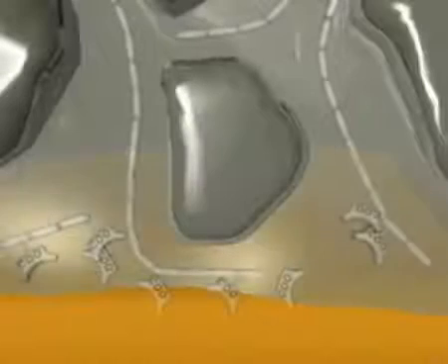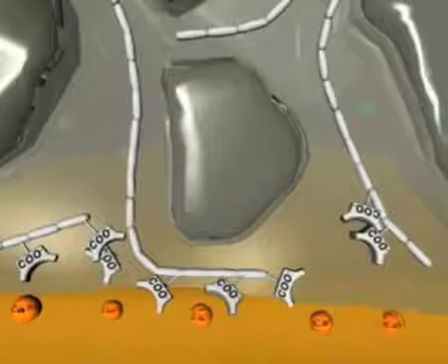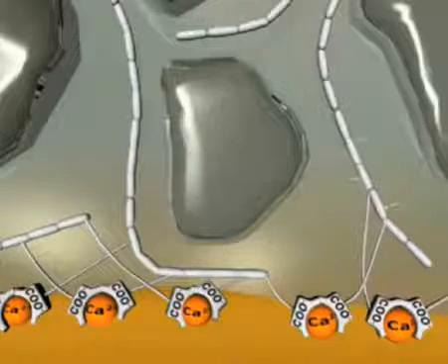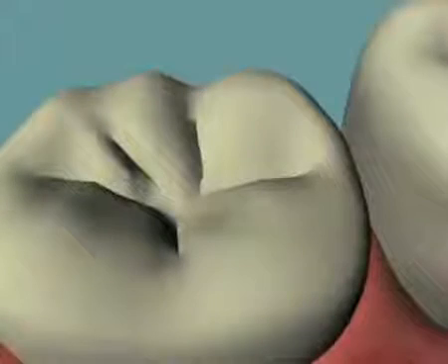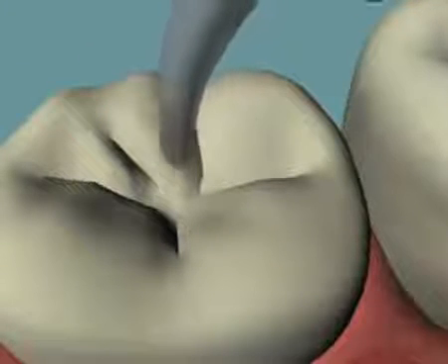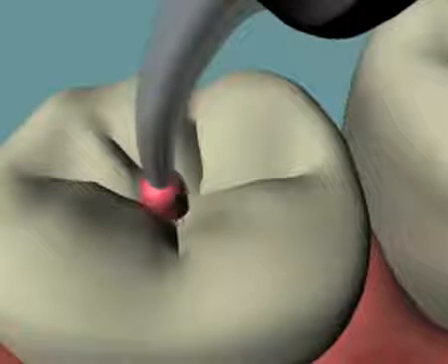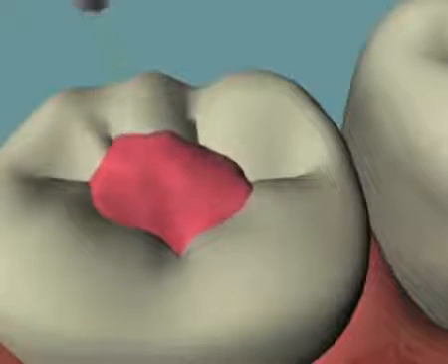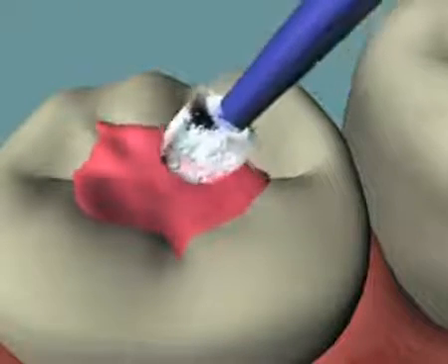The glass ionomer reaction is a complex one, and many benefits are obtained: a strong chemically fused seal, fluoride release, internal remineralization, and good long-term stability of the glass ionomer–tooth interface. The many benefits offered by glass ionomer technologies have led to the development of low-viscosity cements, which are applied to tooth surfaces like a varnish, offering a long-term protective coating for surfaces at risk.